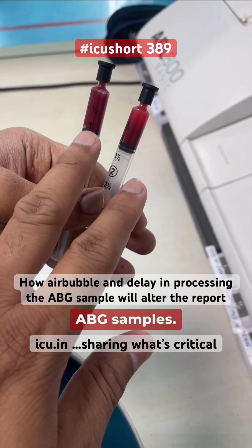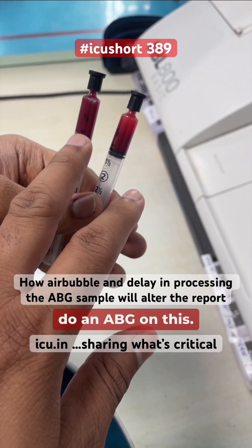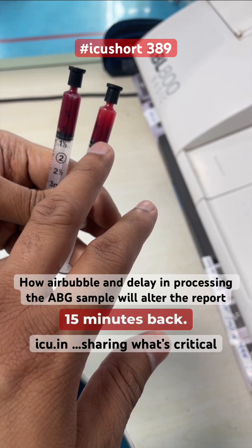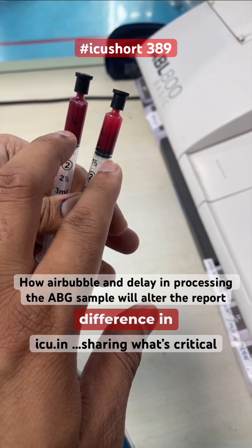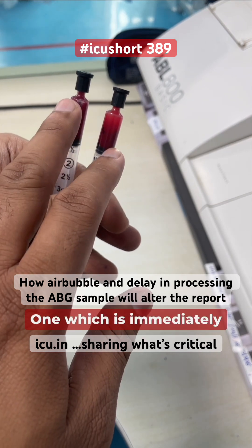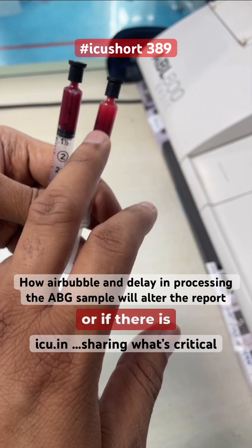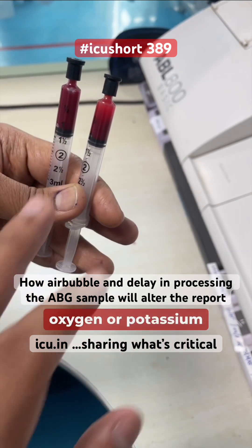We have two ABG samples. One is taken immediately and we'll run an ABG on this. The other sample was taken about 14-15 minutes ago and you can see there is an air bubble in it. We'll see the difference in both blood gas reports — the one immediately taken, which is the correct approach, versus one left on the desk with an air bubble, and how much difference there is in values like oxygen or potassium.